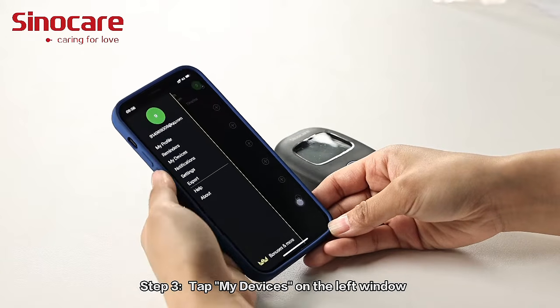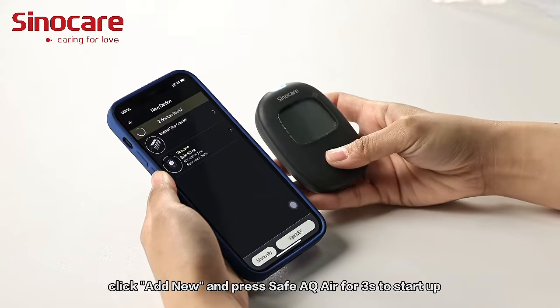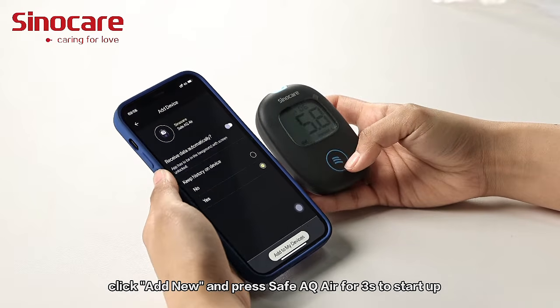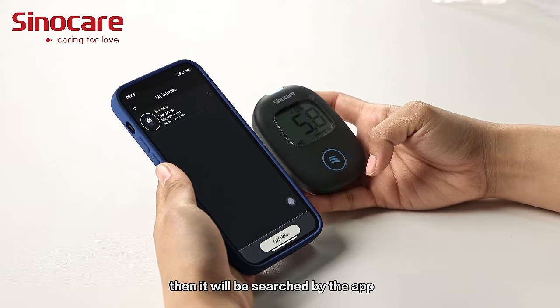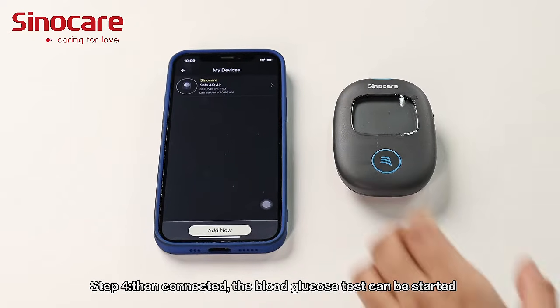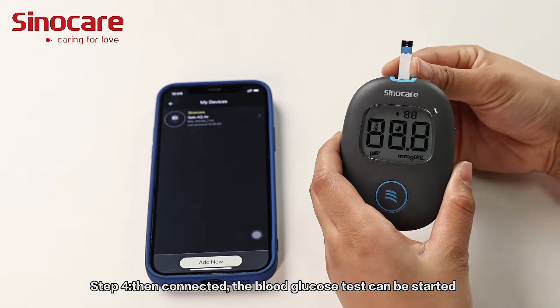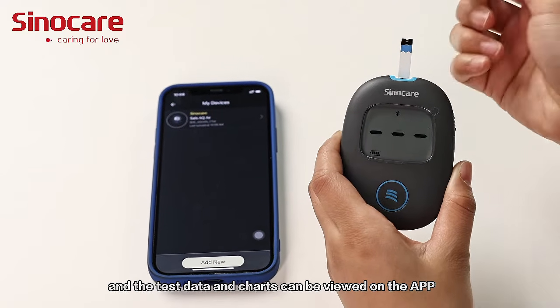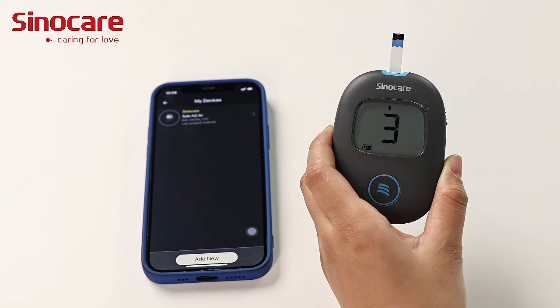Step 3. Tap My Devices on the left window, click Add New and press SafeAQAir for 3 seconds to start up. Then it will be searched by the app. Step 4. Then connected. The blood glucose test can be started, and the test data and charts can be viewed on the app.